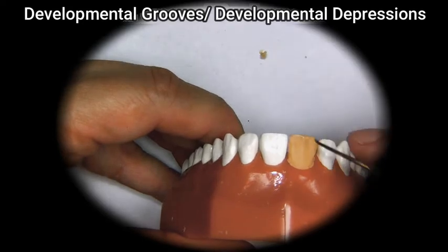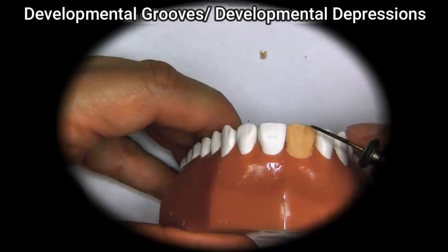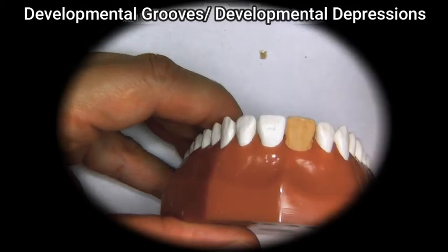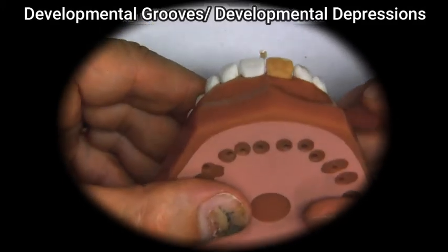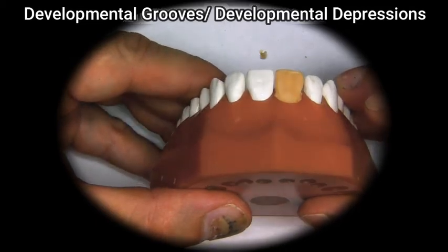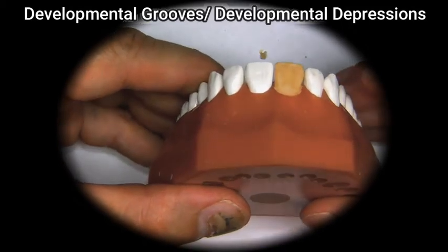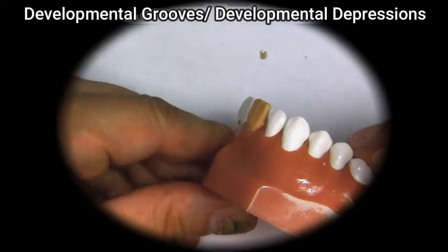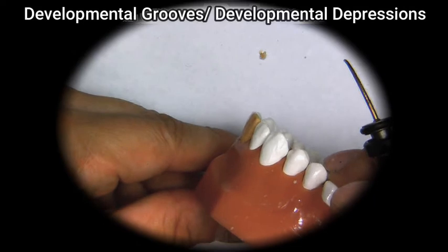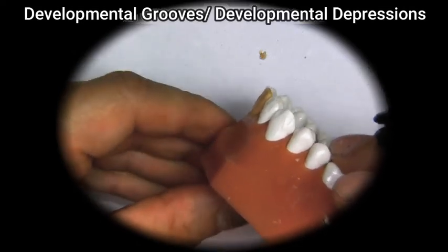And this is only on the corner of the incisal edge, the facial corner, I should say. So now we turn it a little bit more, and we see that it's starting to look more or less the same. So now if we look at it from the side, you can see it's starting to look just about even.